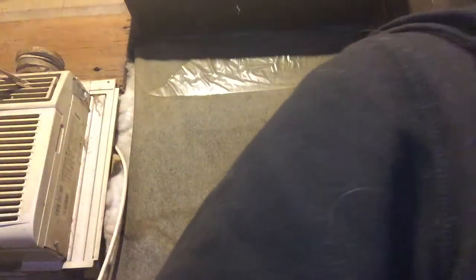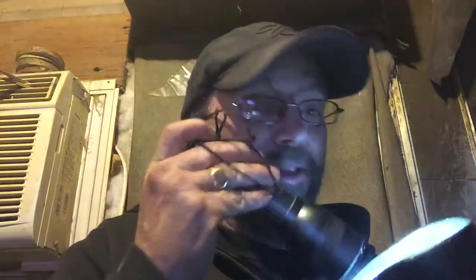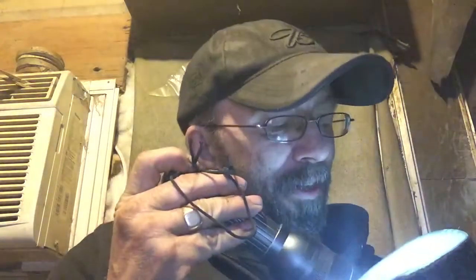As for the cup socket, you'll want to check out your sleeve. Look that over and make sure there's no holes in it. Something I had discovered years ago — I just happened to be looking down at it with a flashlight and there were cracks down there. Time to get this repaired. So periodically I'll just take the flashlight, look down, and see if I can see any visual cracks or stress marks or anything like that.